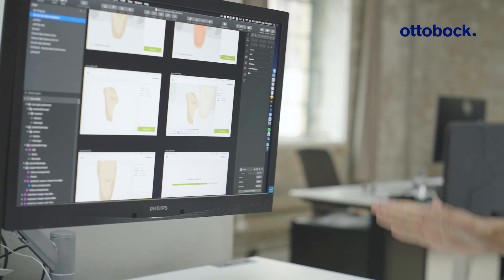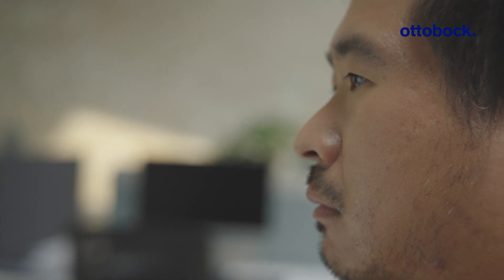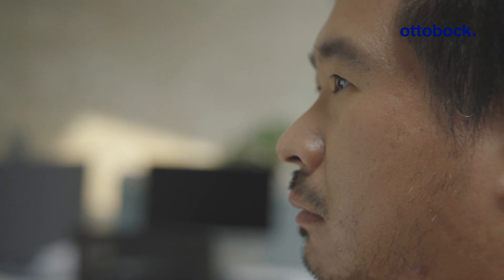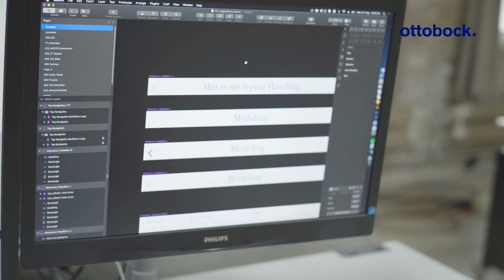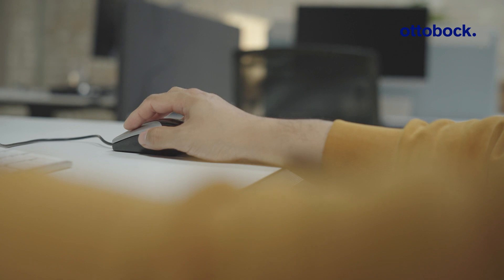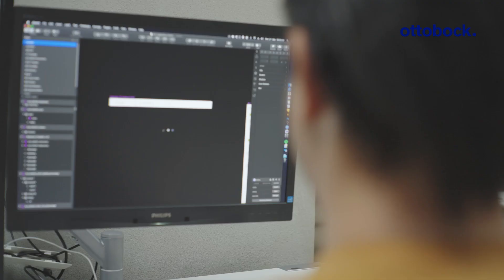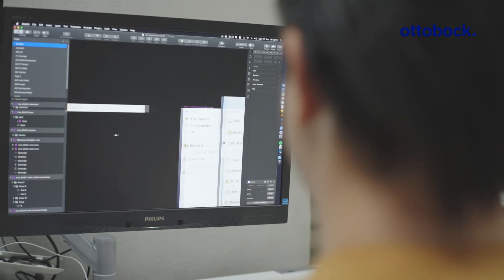With the reduction tool, there's a lot of information displayed to the user and a lot of options they can act on. In order to take all of that, bring it down to a very small side panel, and have it be: one — understandable, two — usable, and three — beautiful, that's a real challenge.